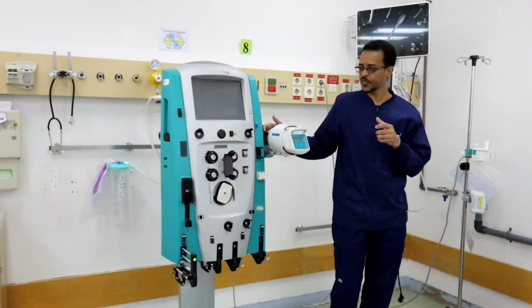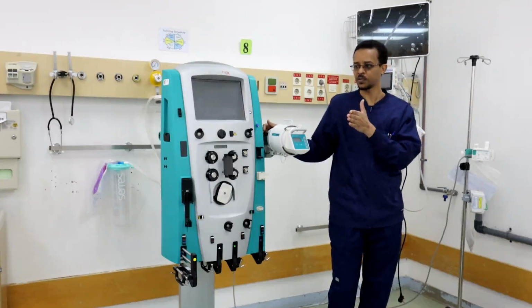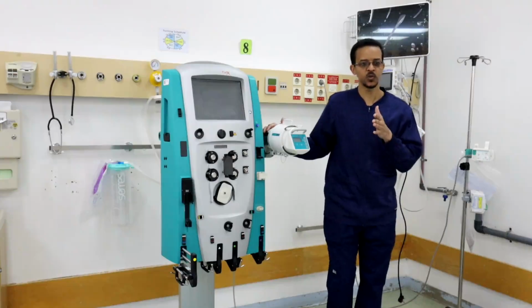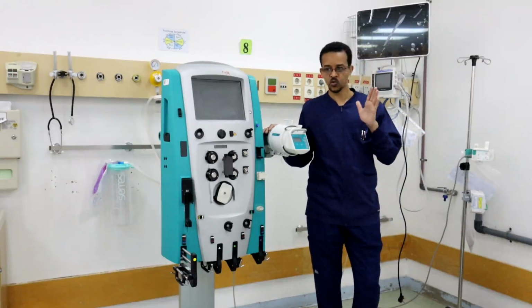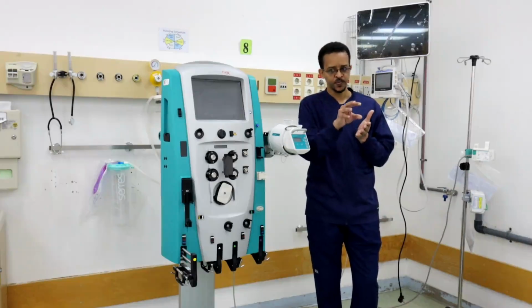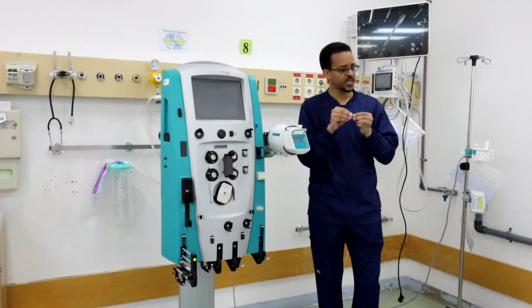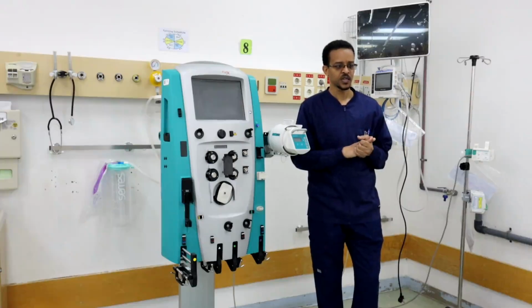Next thing, the CRRT, continuous renal replacement therapy. For CRRT usually a prolonged time of therapy is required. Usually we run CRRT for 1 to 3 days, 72 hours could be running. So during the CRRT usually we prefer to withdraw blood from a vein and to bring blood back to the patient through a vein, through a hemodialysis catheter.